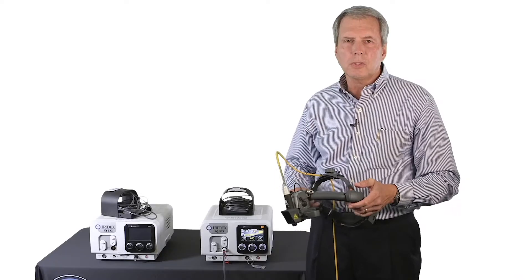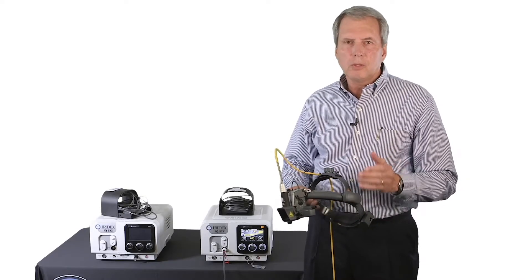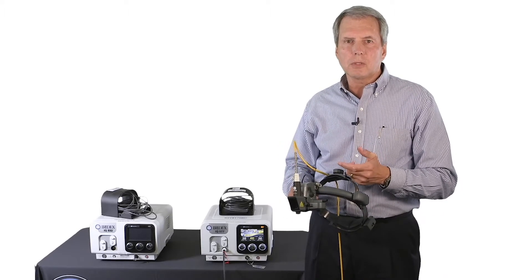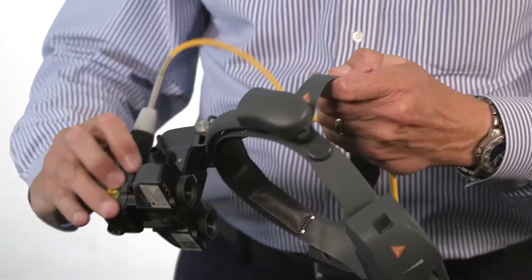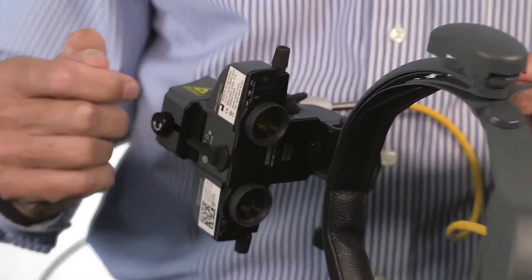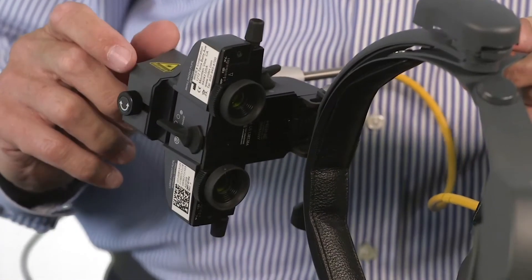In focusing the indirect and adapting to you, you'll need to set, and it's critical that you set the pupillary distance on each ocular. Each ocular will work independently, so you need to adjust each one independently.